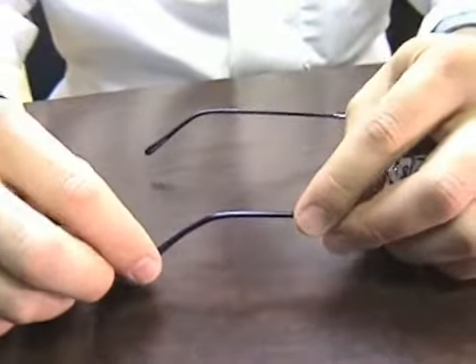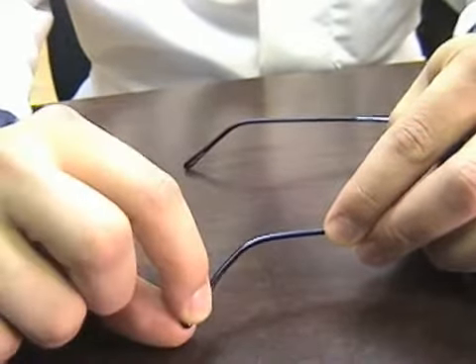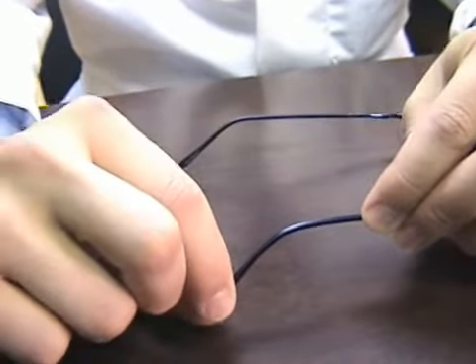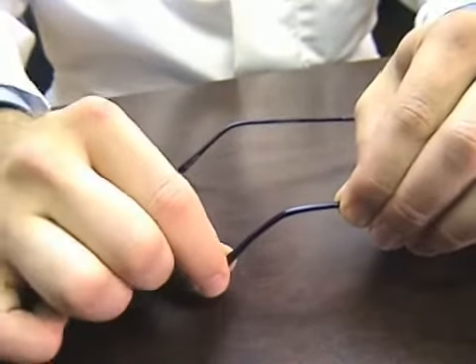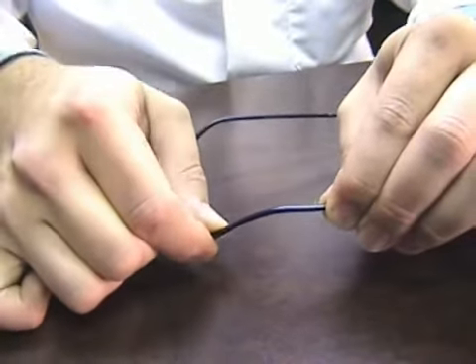If the earpiece itself is sticking too far out, you can also do the same by applying force here, grabbing the earpiece, and pulling it back towards the inside of the frame.